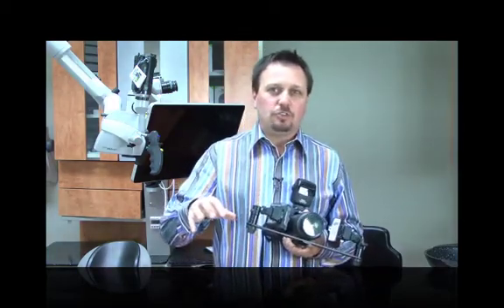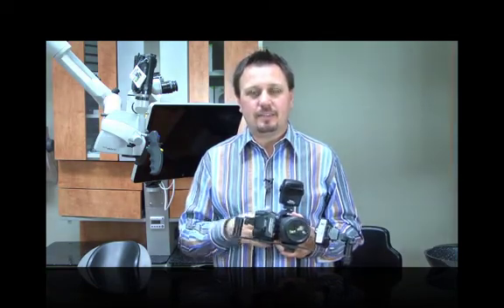I've been using a Nikon D3 and then switched to include the Nikon D3s — both are fantastic pro cameras for clinical photography. The only problem with them is they're very heavy and quite expensive. Between the size, weight, and price of these cameras, I thought it would be good to have another alternative to share with all of you.